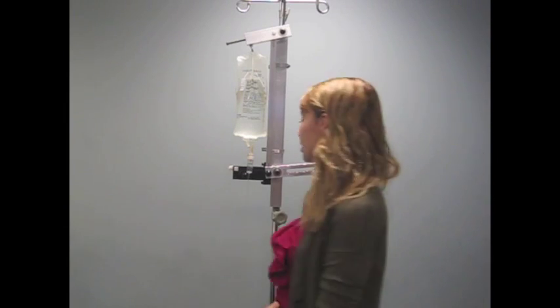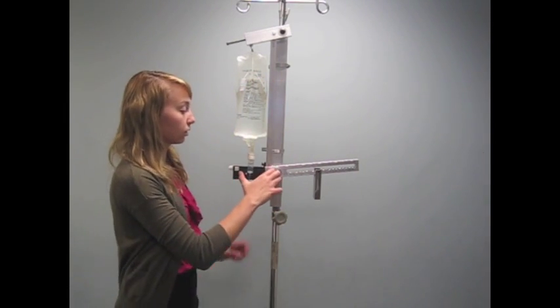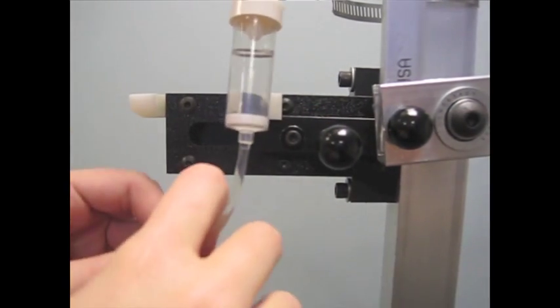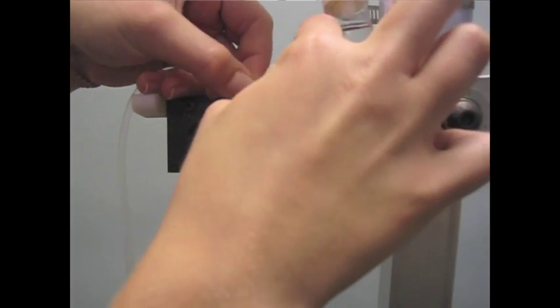Next, the clinician needs to slide these two knobs together, like so. Finally, the clinician would push the tubing into the two tubing holders.